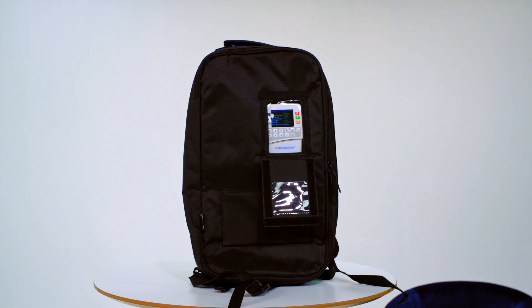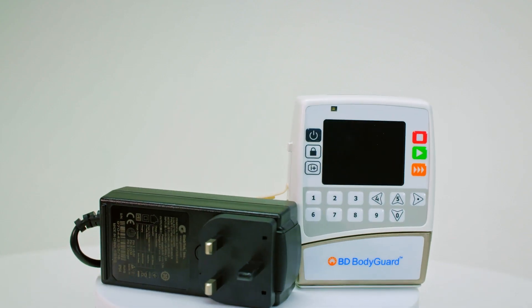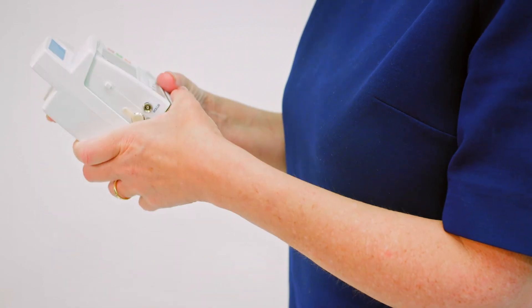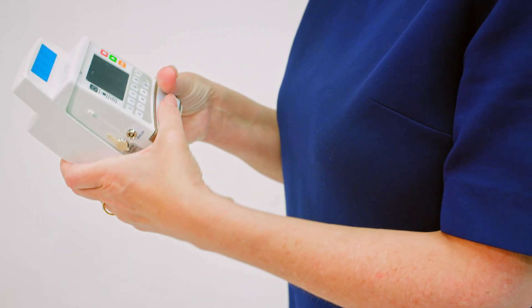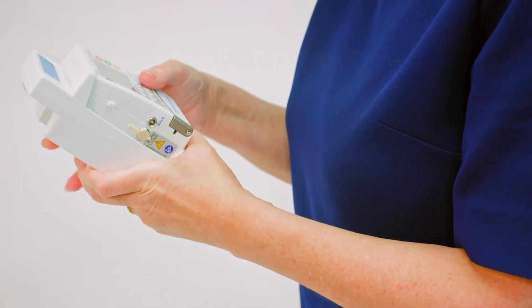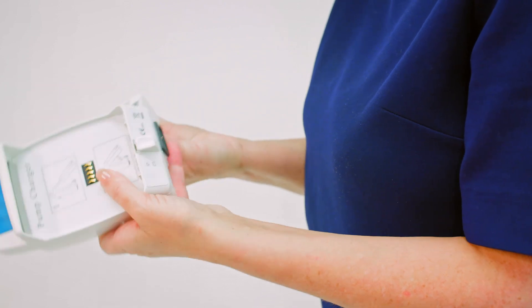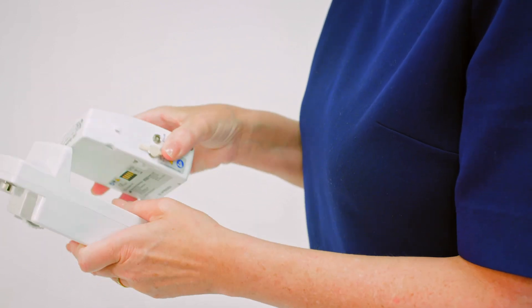Kits can vary based on your medical needs, as well as a choice of accessories to support your administration. Carefully remove the pump and charger from the box and check that no items were damaged during shipment. If you are at all concerned that the pump is damaged or something is missing from the box, please contact your medical provider immediately.